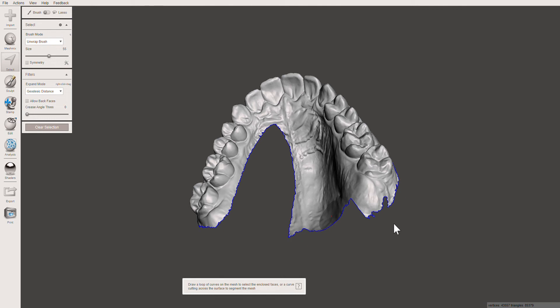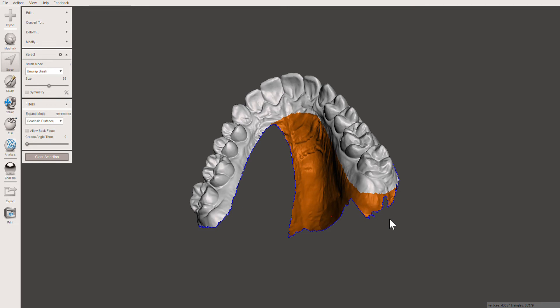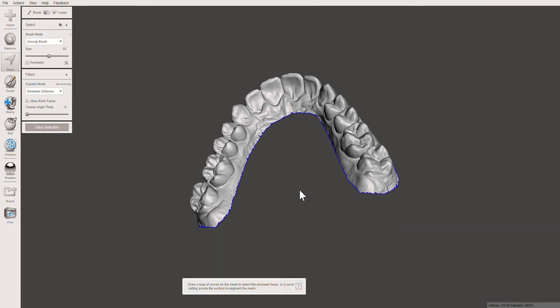The second method is the click-and-drag method, where you start on the outside on the gray area and just click and drag, then release. Click, release, drag — and just keep going around. This is a more controlled method. You can make one full round, click and drag, then connect it until you get just what you want, and press Delete.